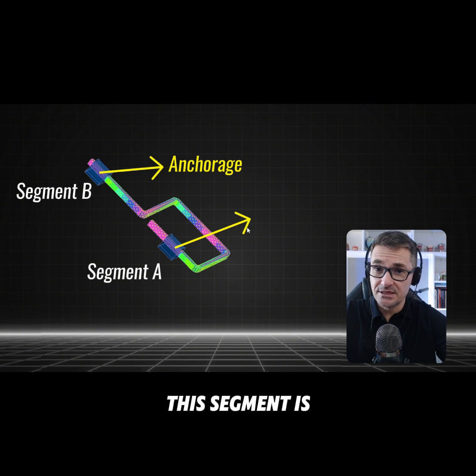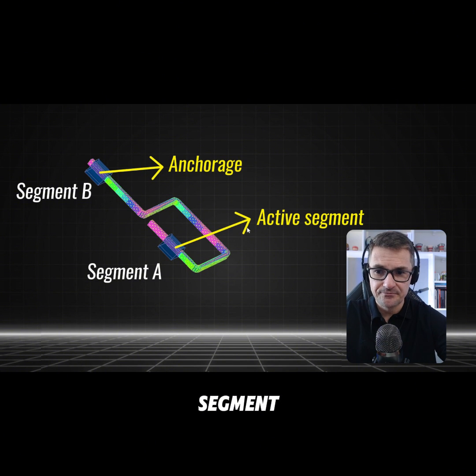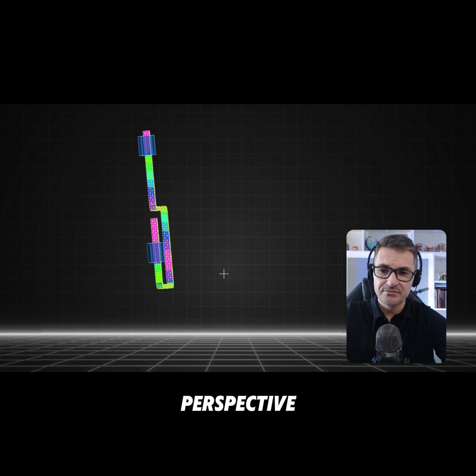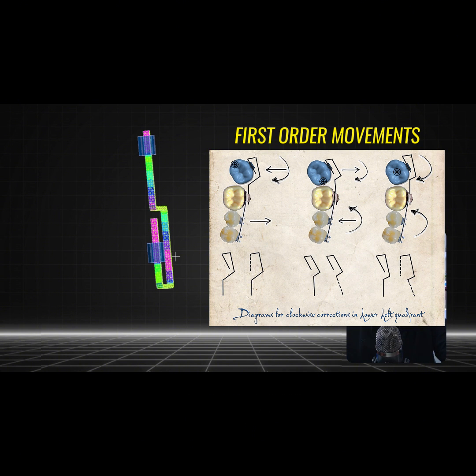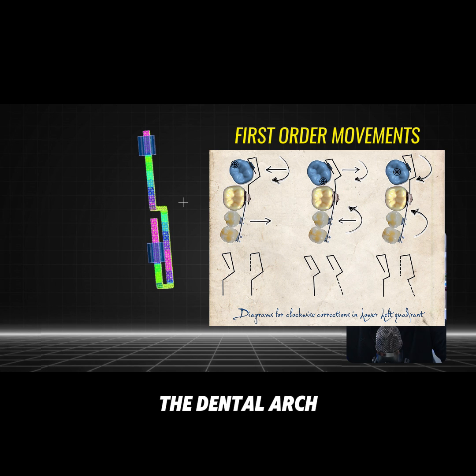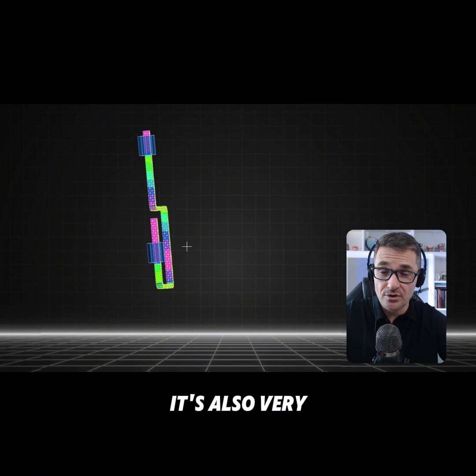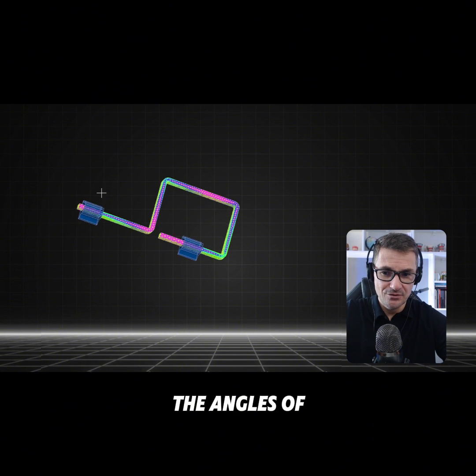Segment A is also referred to as the active segment. When we need to perform first-order movements — the ones related to the occlusal perspective — the bends will be made on segment A and segment B, inwards or outwards in relation to the dental arch, depending on the specific movement you want to perform.